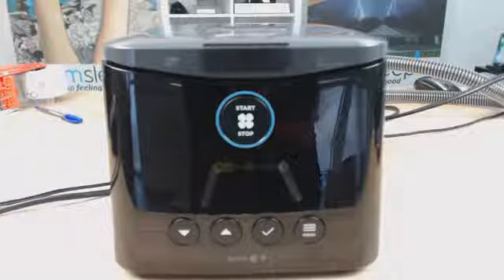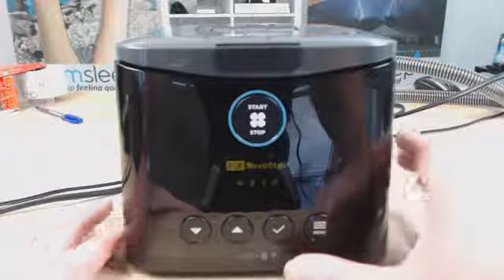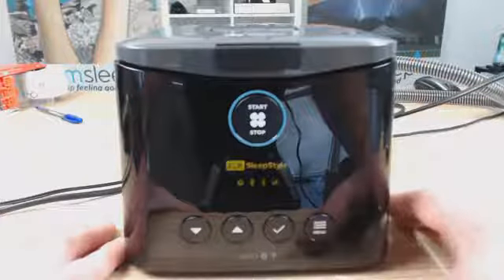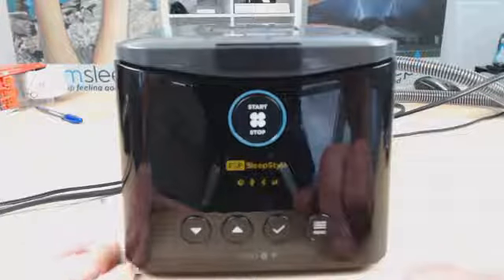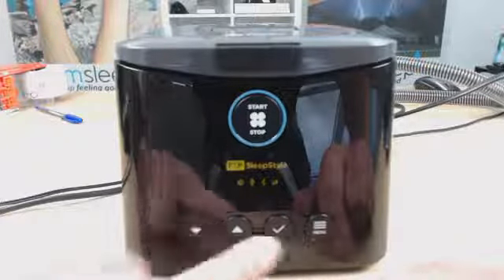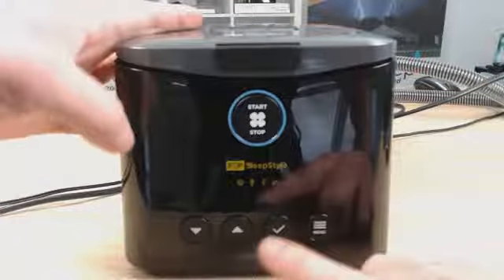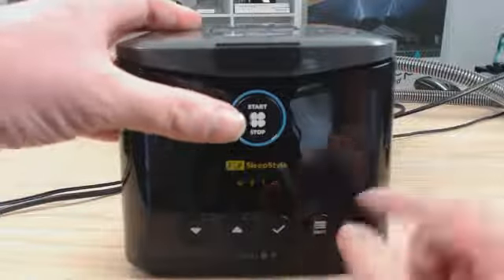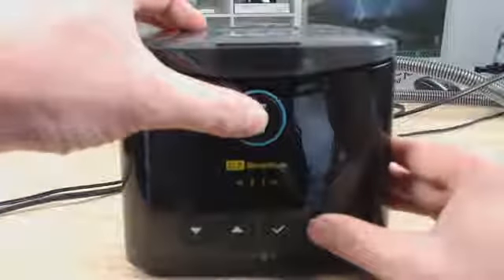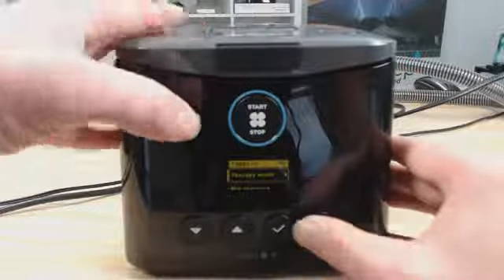So without further ado, let's get stuck in and have a bit of a look-see here. So I've just got the machine here at the front. Now, to unlock the machine and get into the clinical menu, we have to press a number of buttons. With this machine, we can press either of the bottom 4 buttons and the top button simultaneously and hold them down. So you can choose any of the buttons at the bottom and the top button here, the start stop button. I'm just going to choose menu and start stop. Click and hold the buttons down. 1, 2, and it'll say clinician menu.